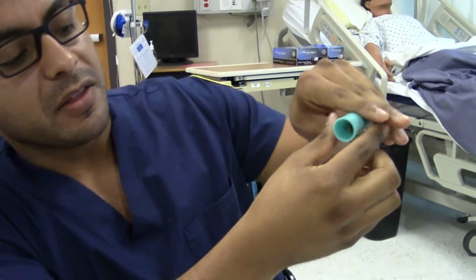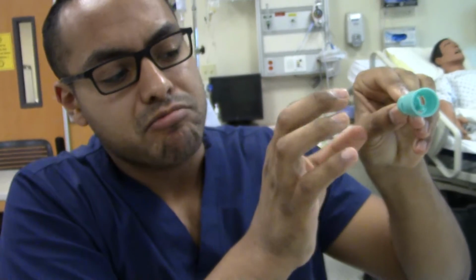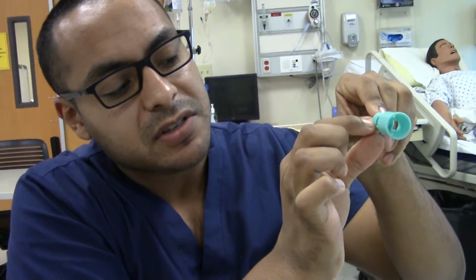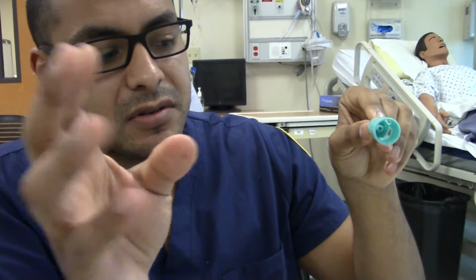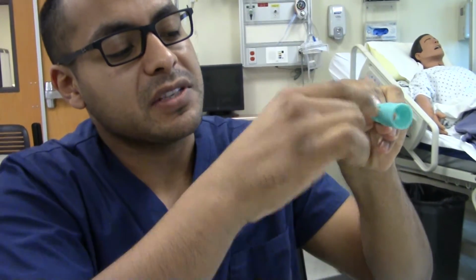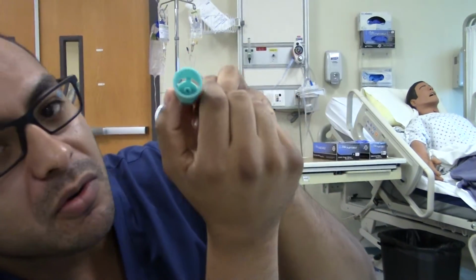There's a top here that covers it, but pretty much the atmospheric air carries FiO2 to the patient. So there's no leakage out. The FiO2 coming through these valves really carries and pushes out the O2 in the little hole here, and the patient is able to get more air and more fixed FiO2. So I mean, it's great.